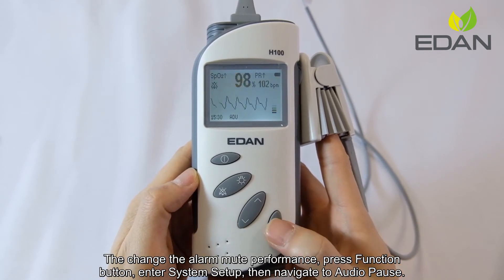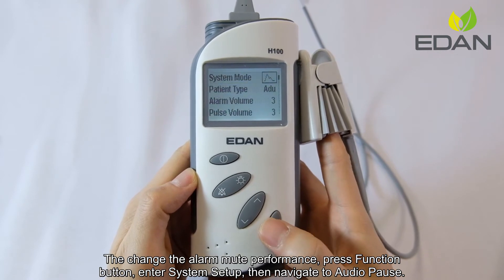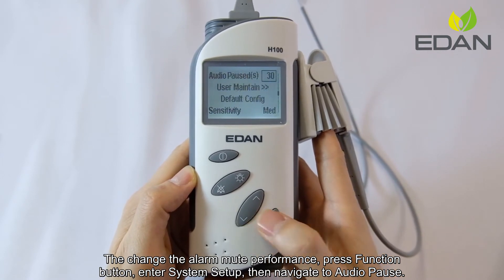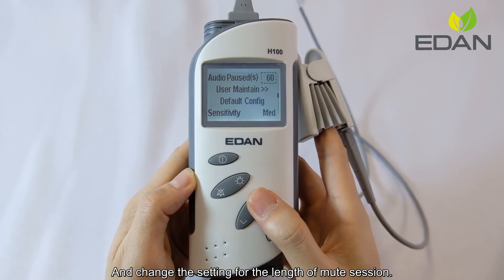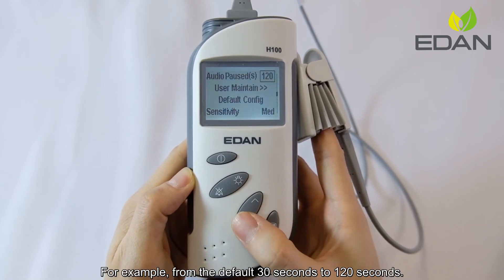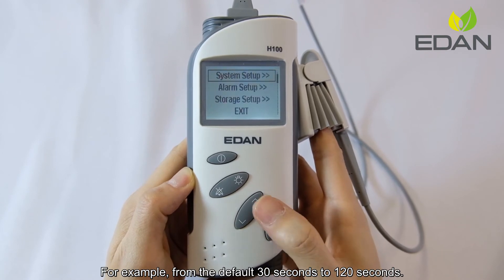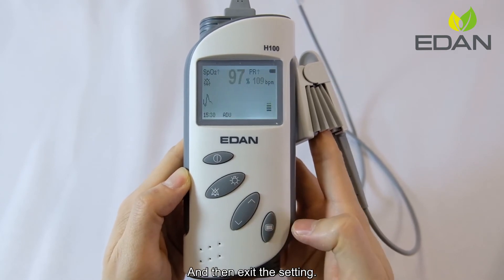To change the alarm mute performance, press the function button, enter system setup, then navigate to audio pause and change the setting for the length of the mute session — for example, from the default 30 seconds to 120 seconds — and then exit the setting.